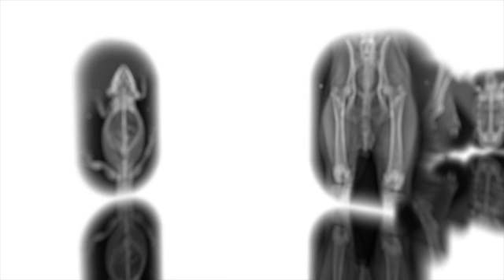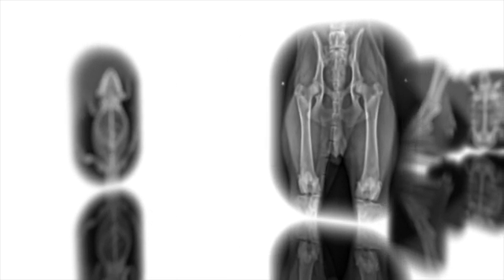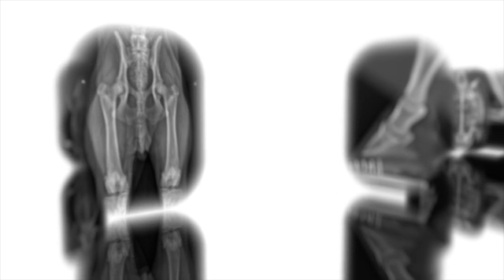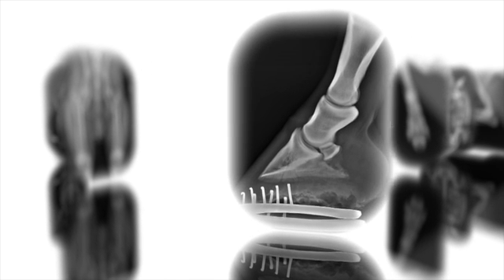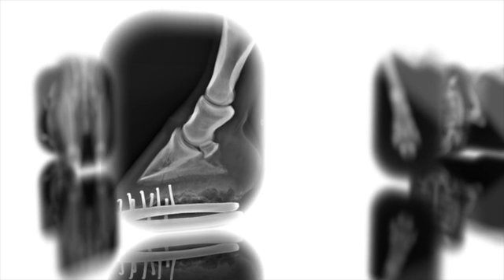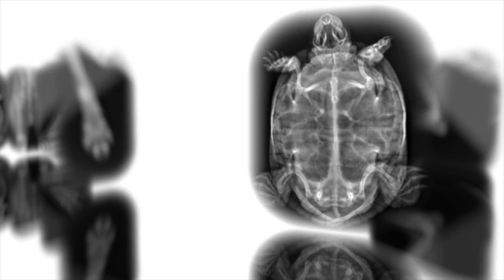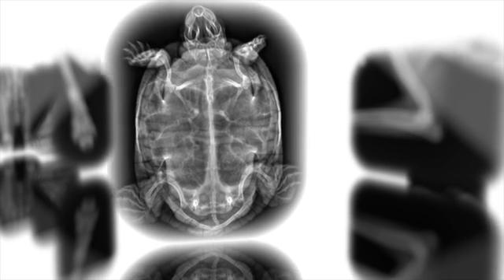Examion AQS software offers you many other useful functions that we can't cover in this short description. We are convinced that with its simple data entry, patient data search function, optimal image processing, important processing and measurement functions, and the comprehensive viewing and archiving functions, Examion AQS software can meet all your digital X-ray needs.